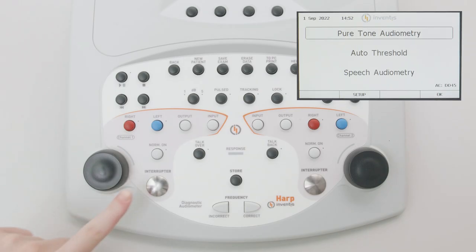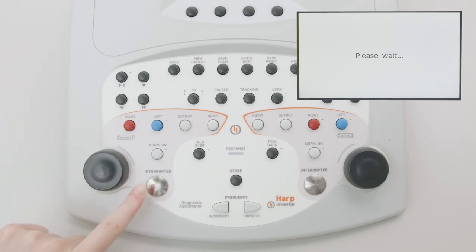To perform a pure tone audiometry test, the operator must first bring up the corresponding window from the main menu. Two display modes are possible and can be selected from the settings menu: separated audiograms for the left and right ear, or audiogram traces for both ears displayed on the same audiogram.